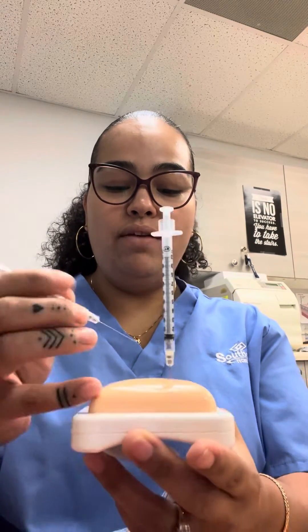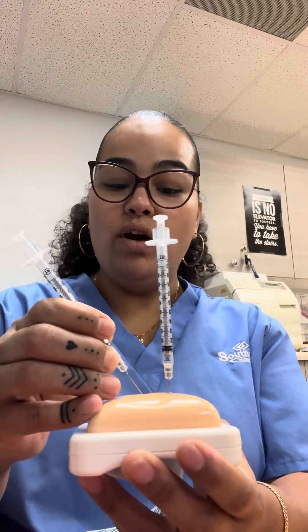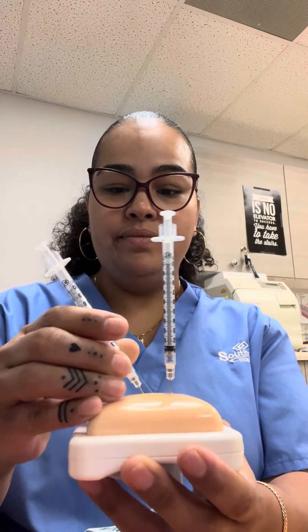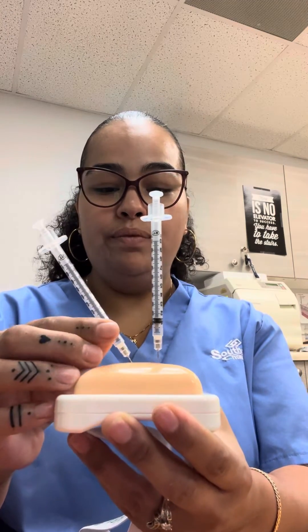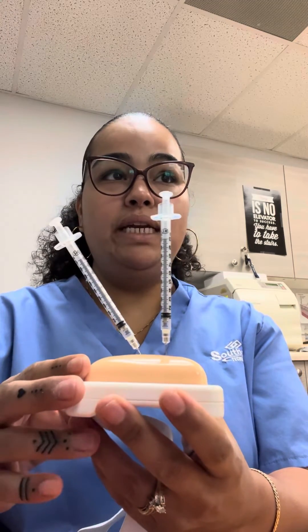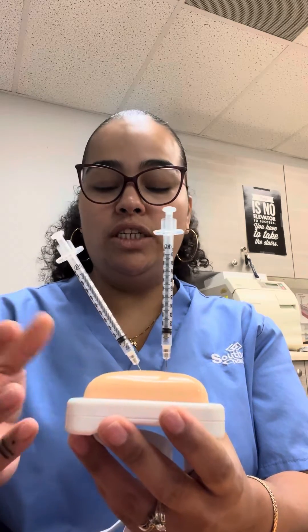Then you have a 45-degree angle, which goes at an angle at 45 degrees, and that is typically done for different types of medications. The most common ones are allergy injections.